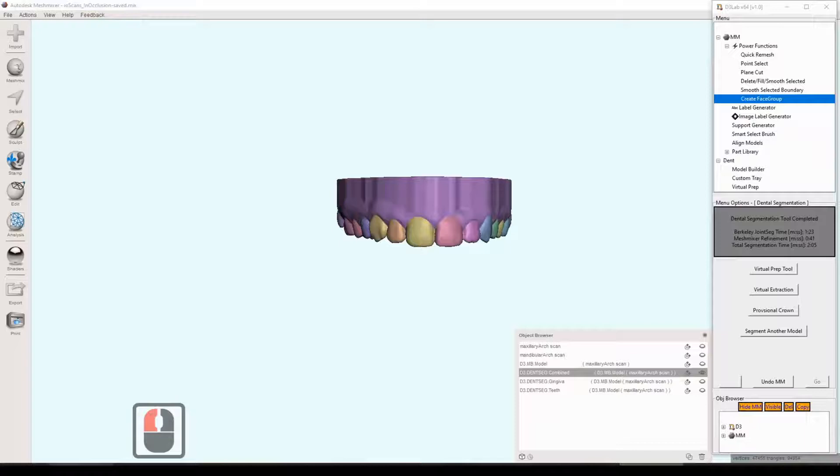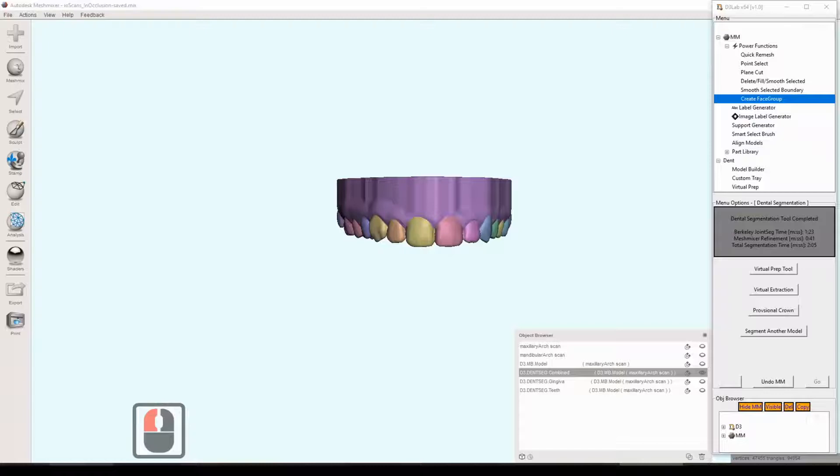Now these tools that we're going to be using today definitely do not need to be used on a model that has been segmented or anything like that. It just makes it a whole lot easier to do. It can be done on a straight scan model. In fact, I think all of these tools don't need to be manifold or anything. It can just be done directly on the scan or a base model either way. But regardless, these tools work very well with a segmented model and we'll just go ahead and show you how they work with the model that we have here.